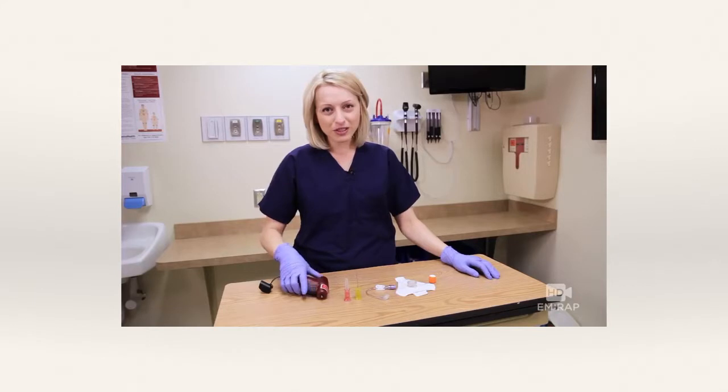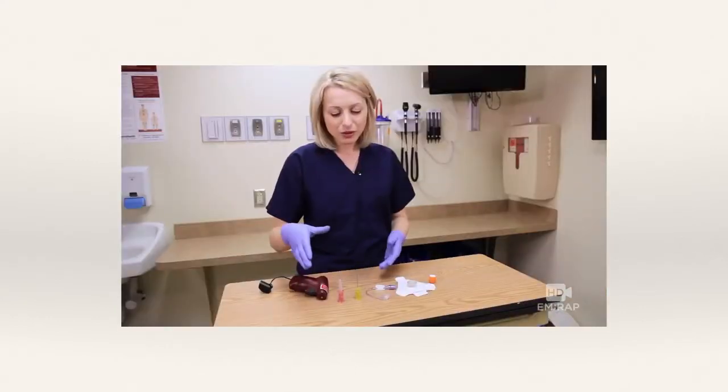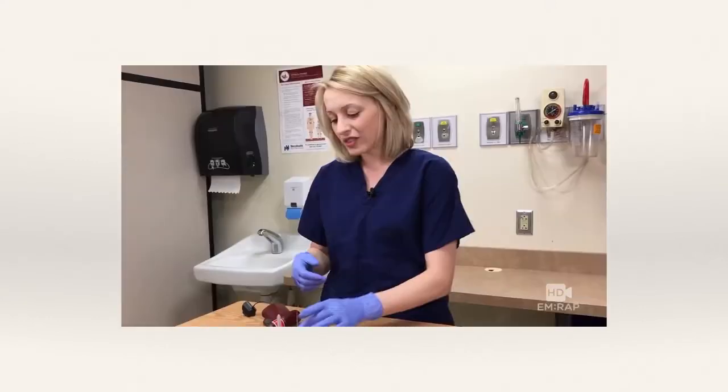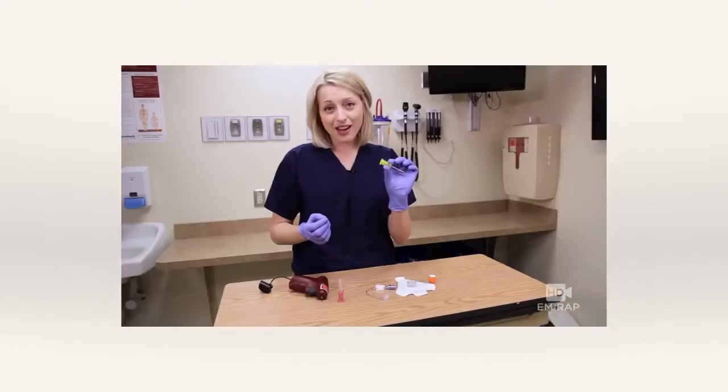The device is essentially a drill with needles that attach to it. You can see the yellow one mounted. Generally you're going to want the blue one — they're $110 a piece. I try to use this fairly regularly just to make sure I'm fluid with it because we do count on this. There are three needle sizes: pink for pediatric, blue which fits most adult sites, and yellow which works well for the adult humerus and areas of adipose tissue — so you can remember yellow for adipose. They attach magnetically to the drill.